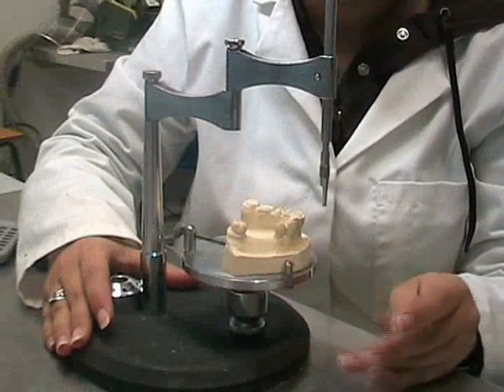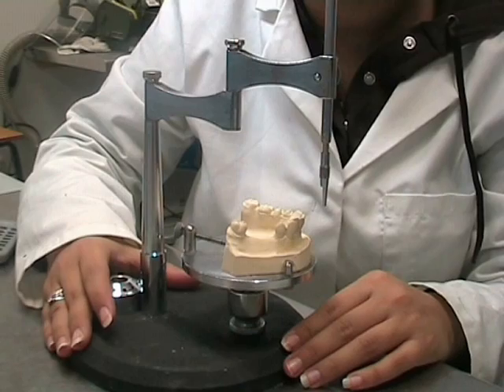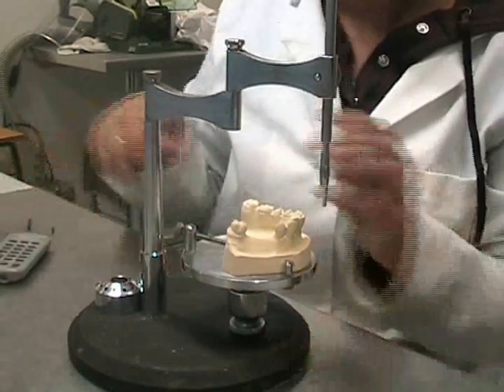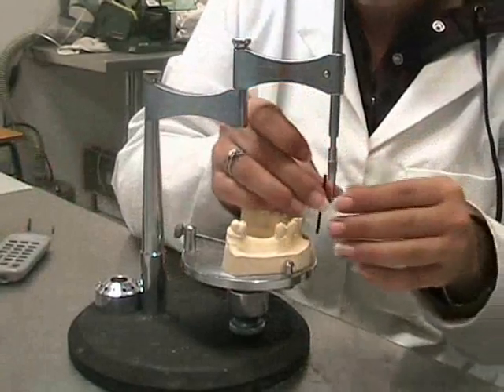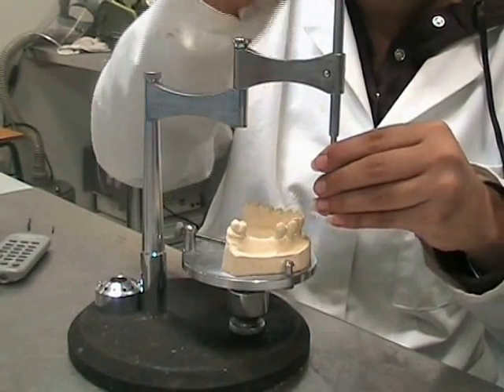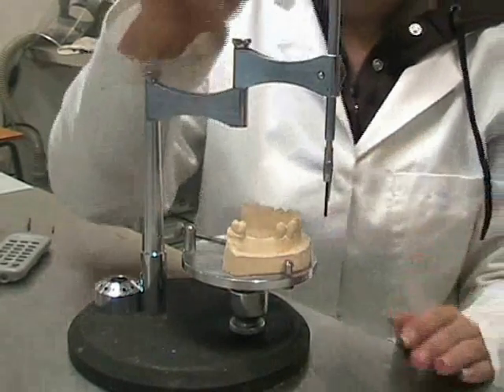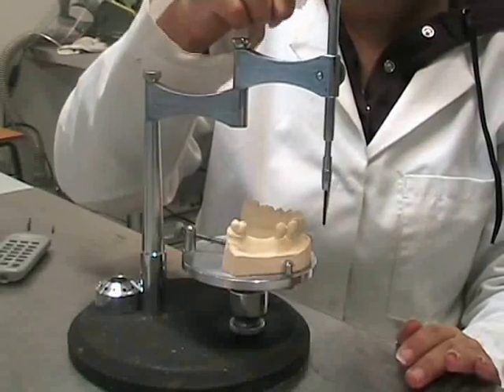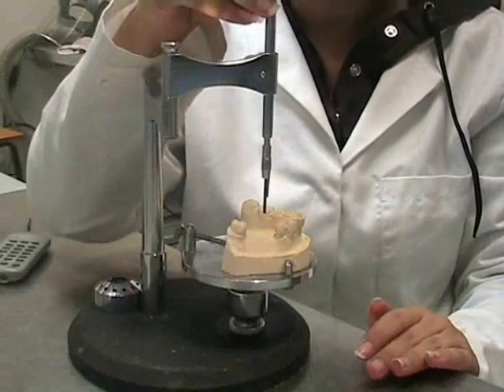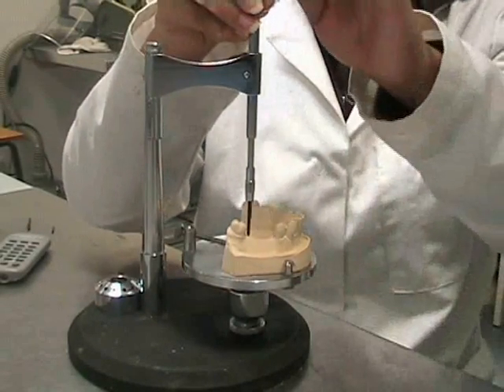Once we have aligned the cast, we then proceed on to analysing the cast using our first dental surveyor tool, the analysing rod. The analysing rod is placed into the chuck and screwed tightly into position. The vertical spindle is able to move up and down. The analysing rod is used to assess the teeth surfaces.